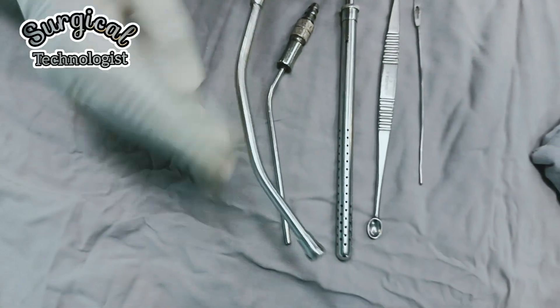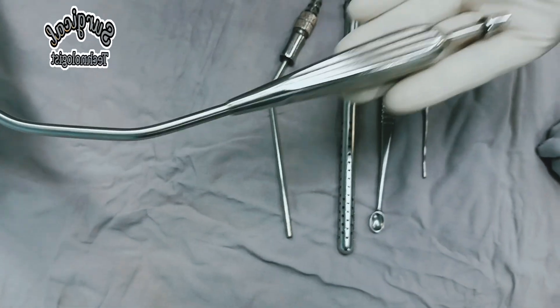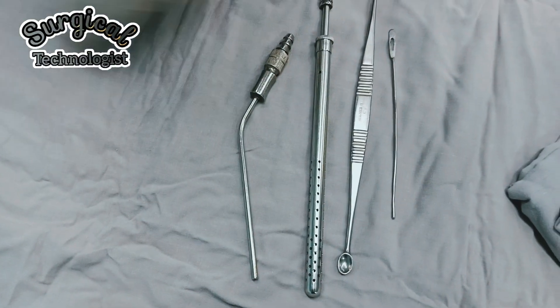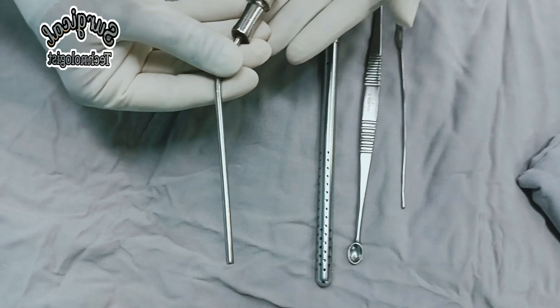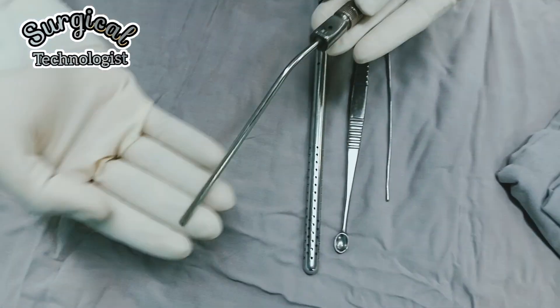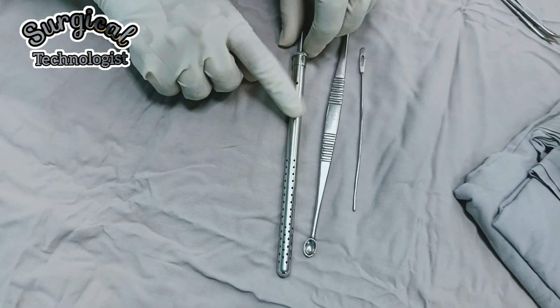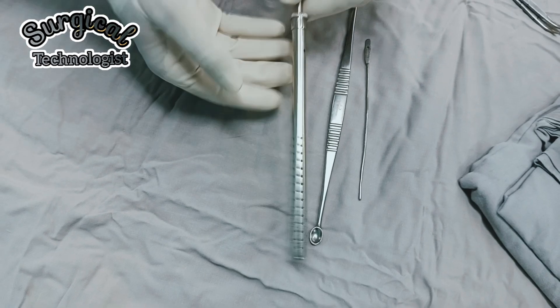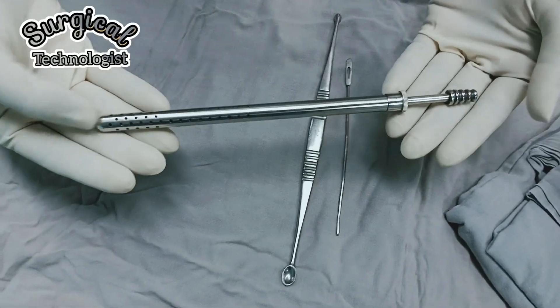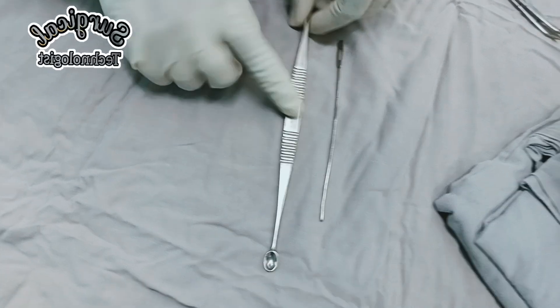This is Yankauer suction with pharyngeal tip, used to suck fluid from the abdominal cavity. This is Frazier suction, used to suck blood at the level of skin. This is sump suction, used to suck fluid from the abdominal cavity, also known as atraumatic suction.